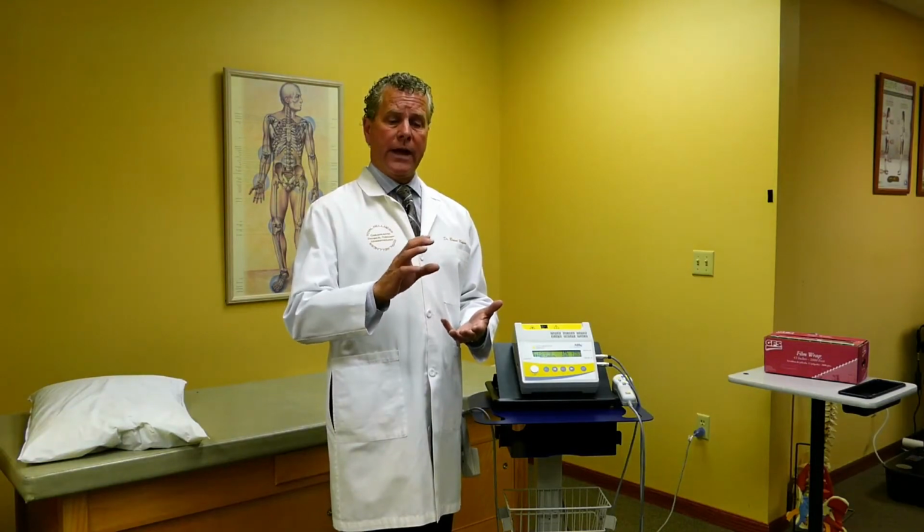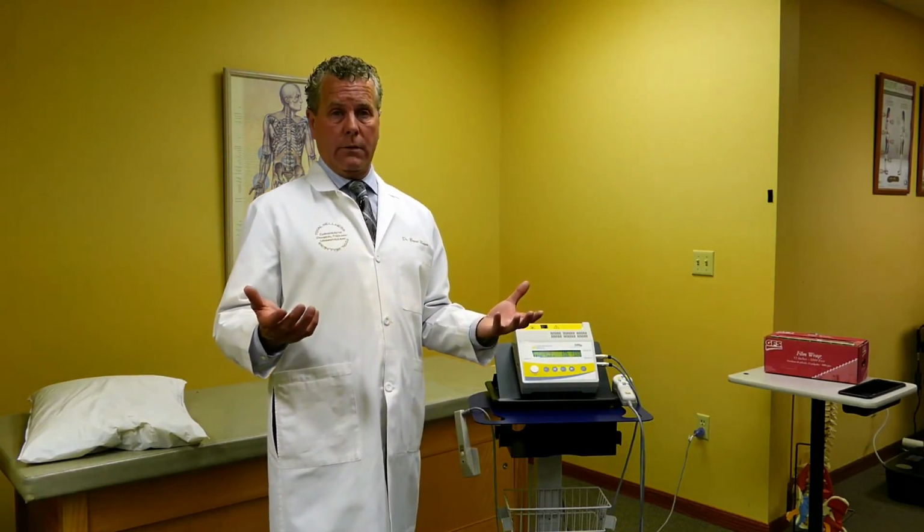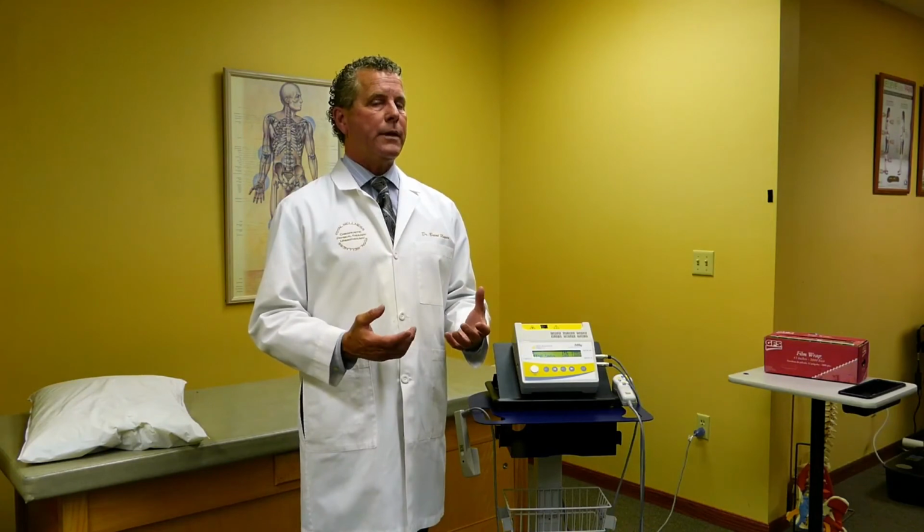I also use the VAS or the goals to tell us how long, or what we should be able to decrease their pain in. And I also tell them in regards to maybe some home health care and what they can do to help themselves. Because we know that sometimes when the patient is not responding to the treatment of laser, it's not typically that the laser isn't working, it's what the patient is doing outside the office that's slowing the process down. And we need to relate that to the patient.